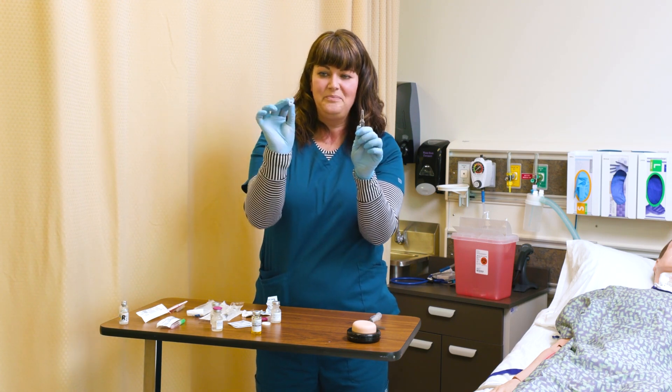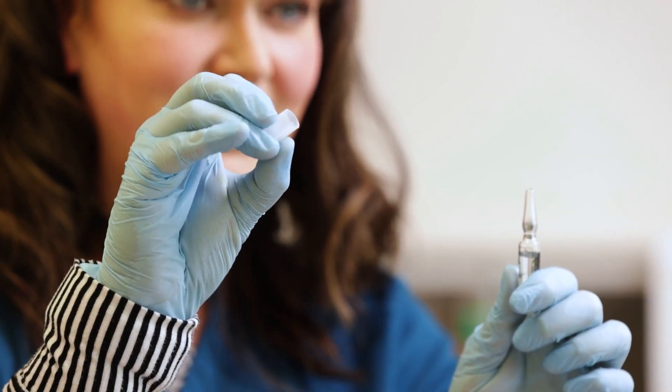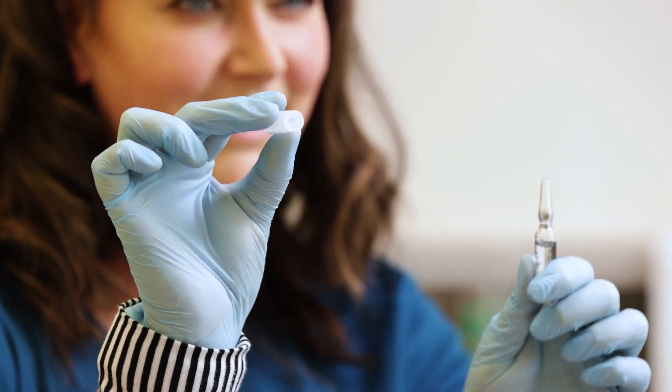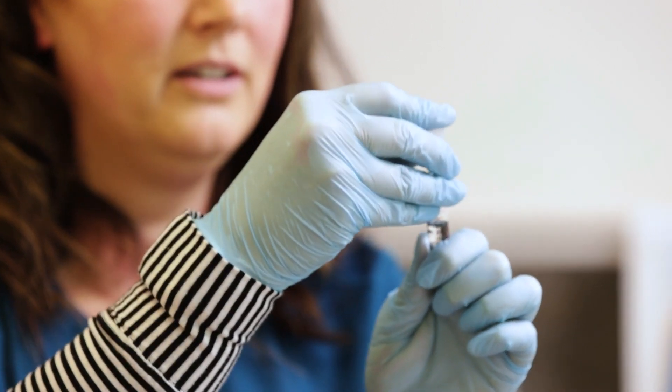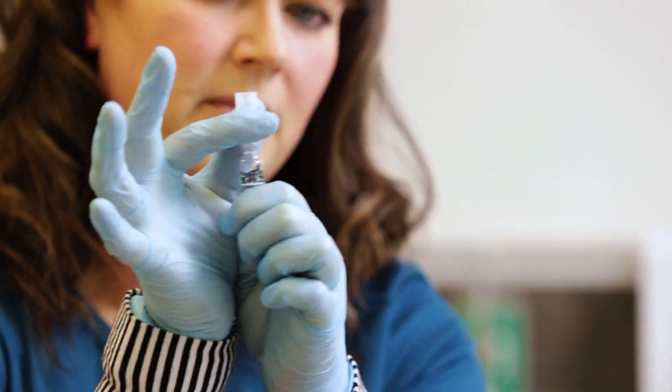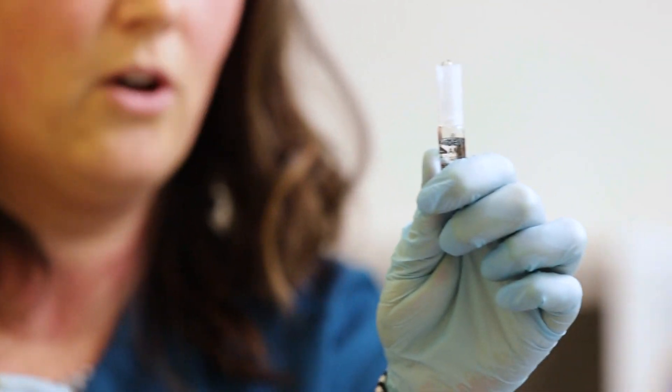The type of breaker we have here — you'll see that one end is just hollow, and the other end has a collar inside. It's the collar that slips over the ampoule. We slip that down until it's all the way over that neck.